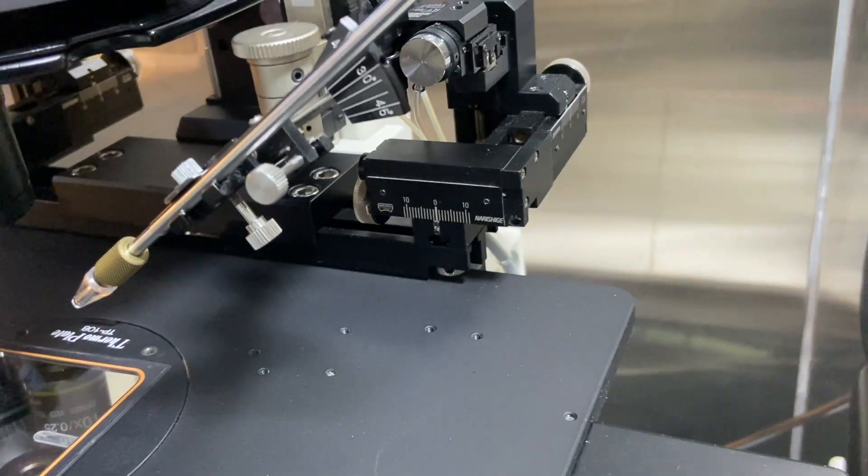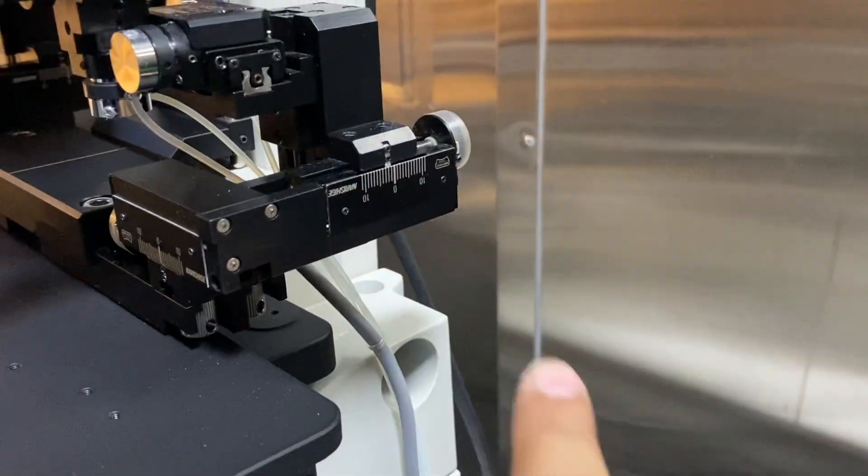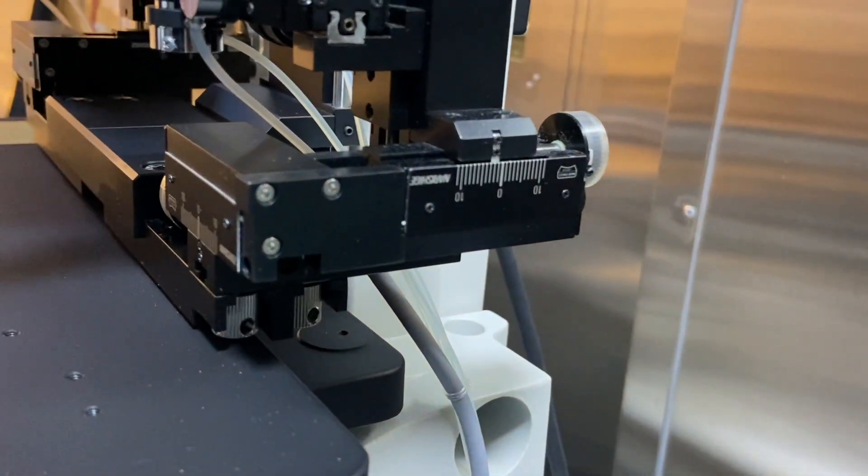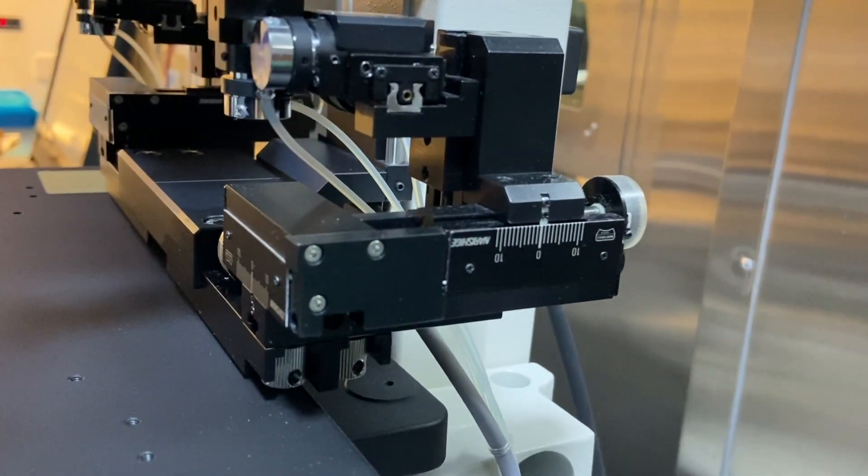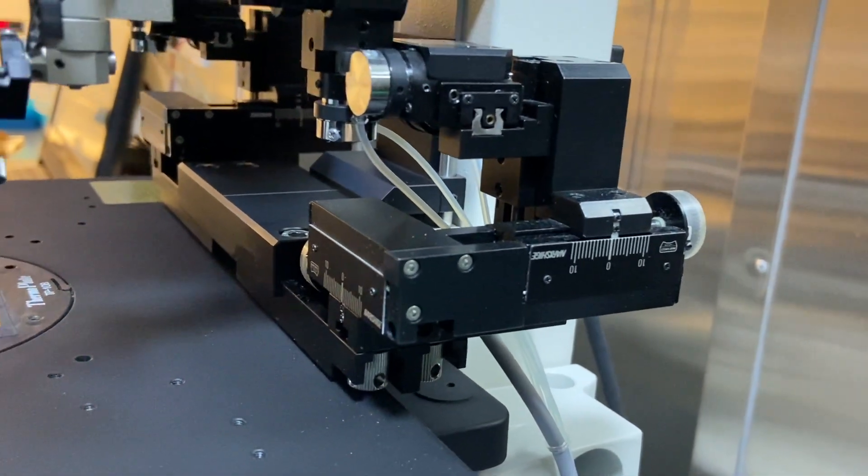Similarly, I will show you if you see this here, this is a little bit towards my side so I will move it towards zero. That means this side is also zero.